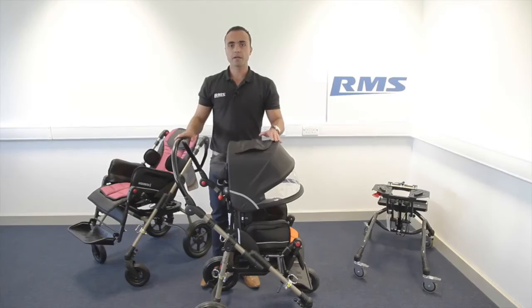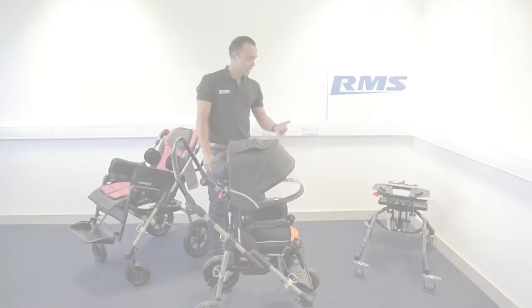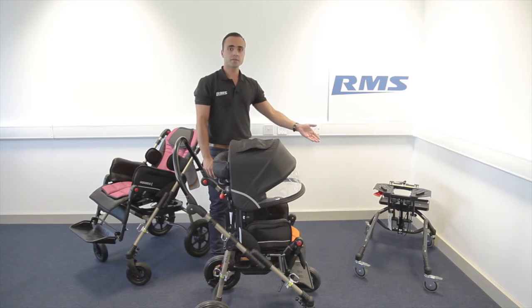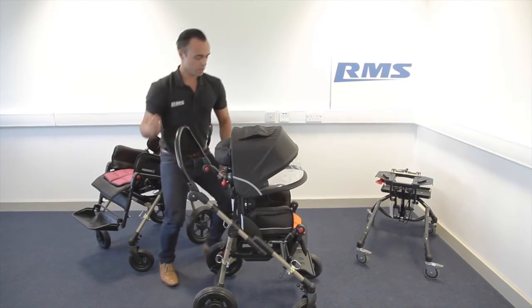The bug is crash-tested on the four-wheel wheelbase. You can swap it easily, because of this interface, to a high-low base like this.